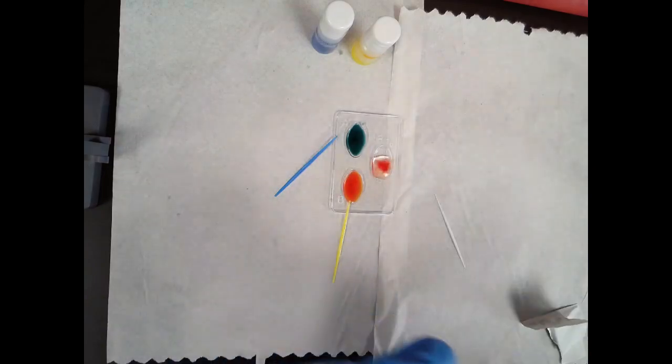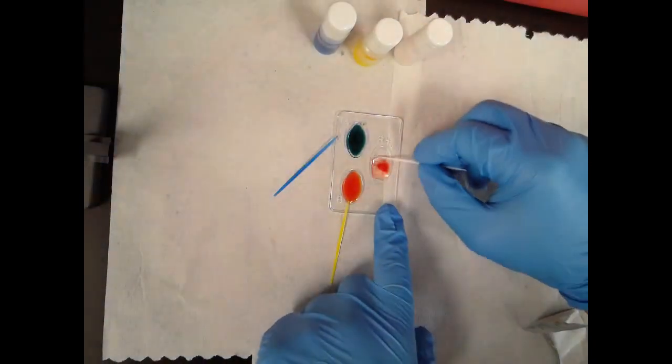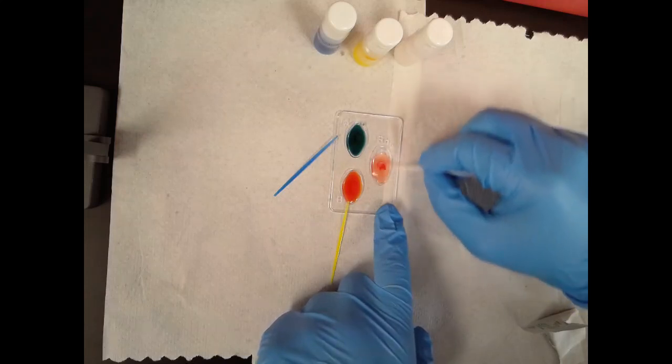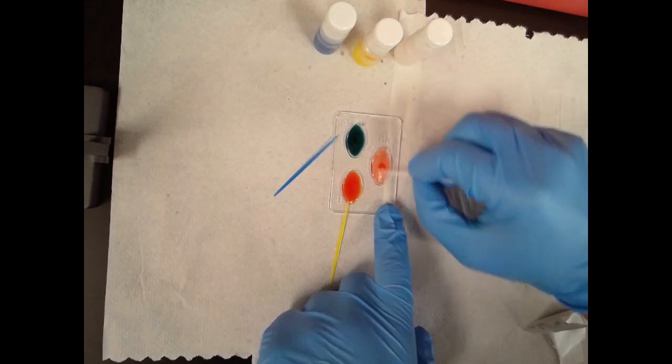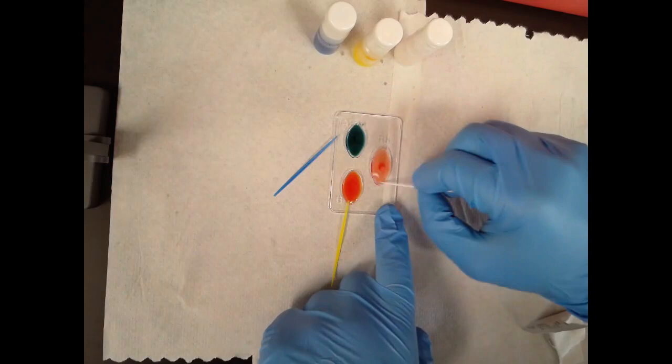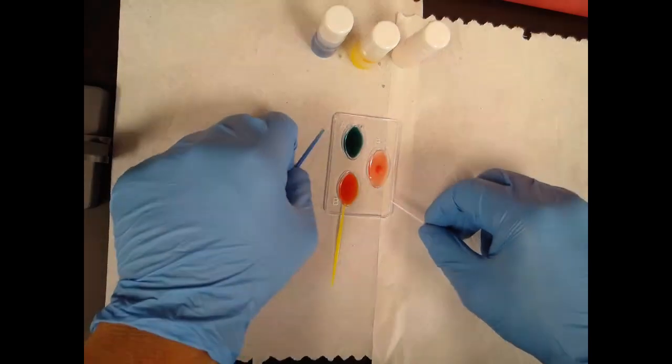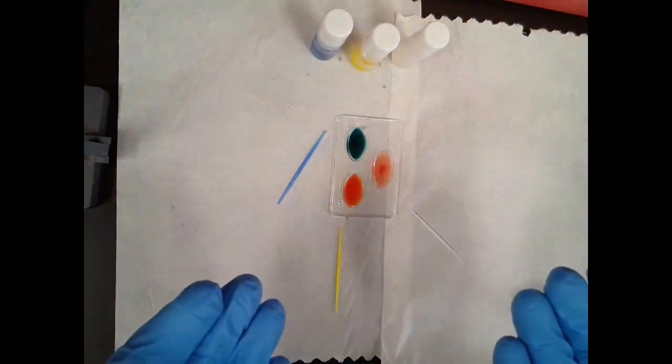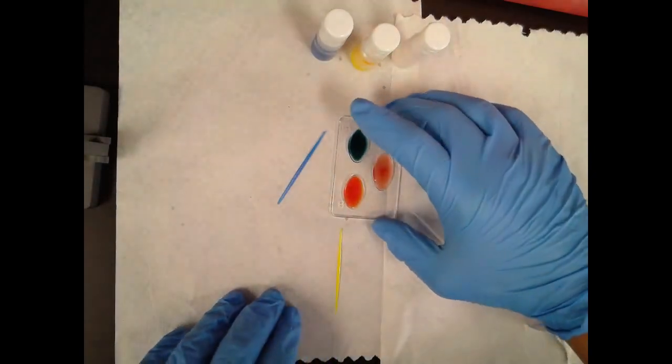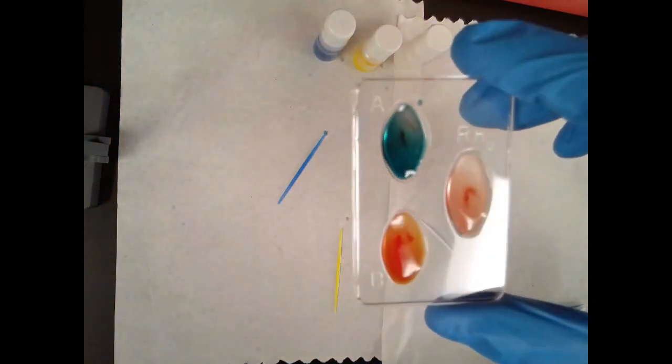From my experience in years of doing this, the RH factor is usually a little stubborn and takes a little longer. I don't know if it's just simply because of the clear coloring or what. But you usually want to be a little patient with this and give it a little bit of time to check and watch for agglutination. And you really want to get in there and just make sure you mix. Make sure you're not splashing too much while doing that. We need three separate stir sticks for these because we want to make sure that there's no cross-contamination of antibodies here. I'm going to lift this up and we're going to look at the results and see how fast this is.